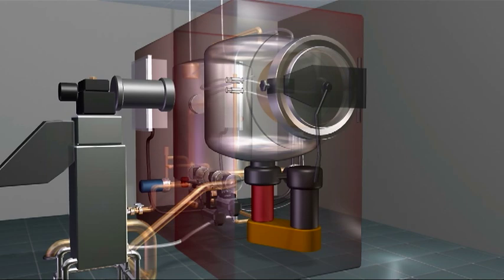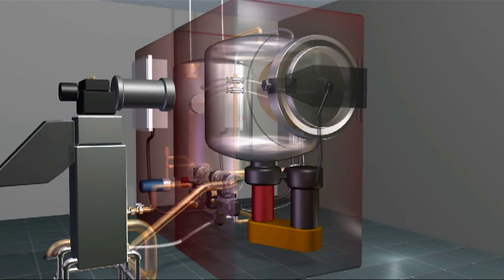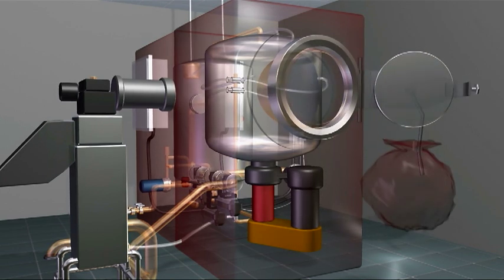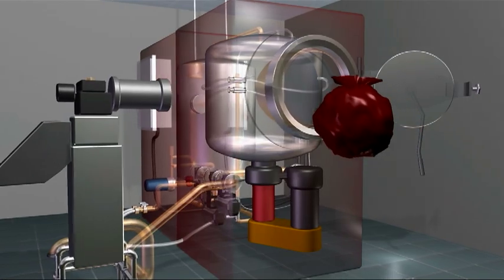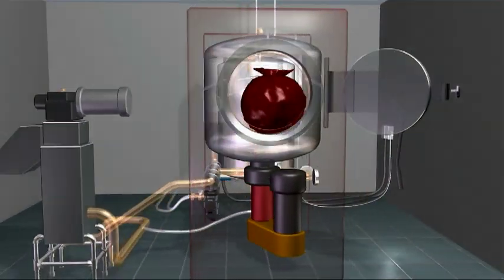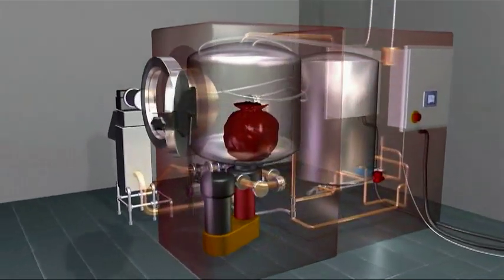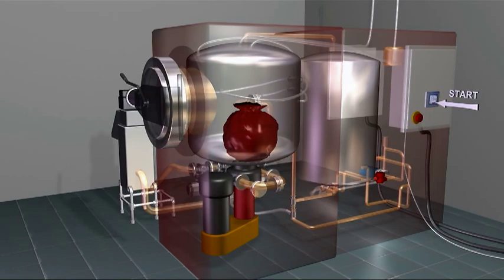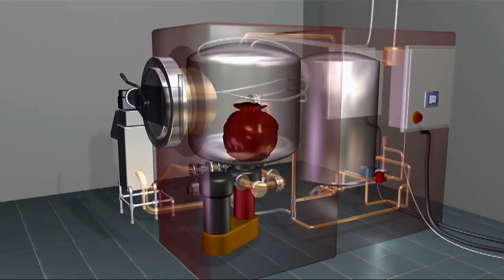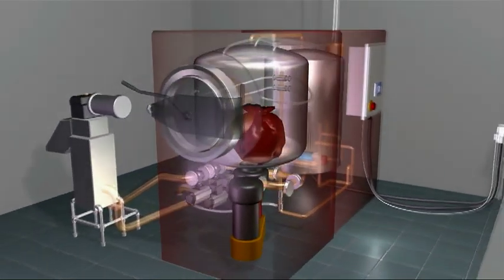The SSM is easy to operate. Just open the door and place some bags or boxes of medical waste and almost any other item that is classified as infectious medical waste into the process tank. Close and lock the door, push the start button, and the automated computer-controlled cycle begins.